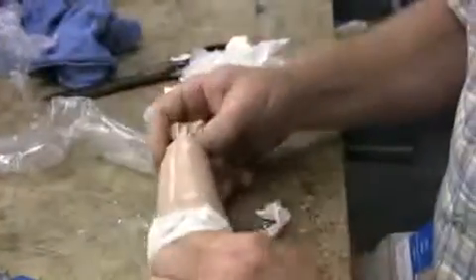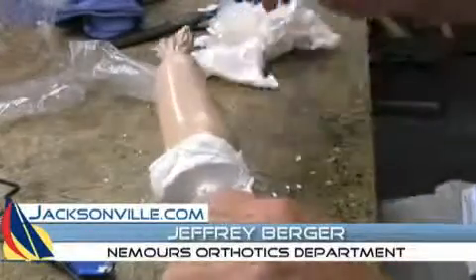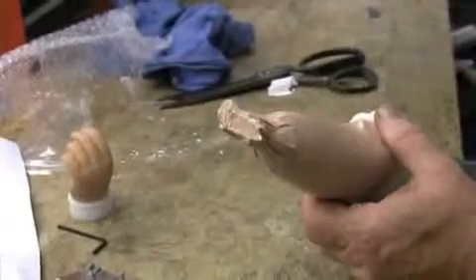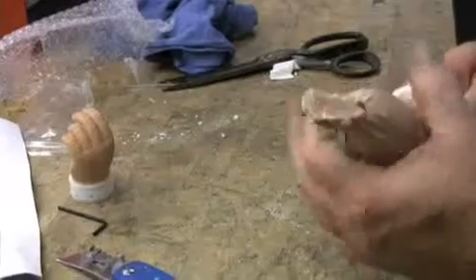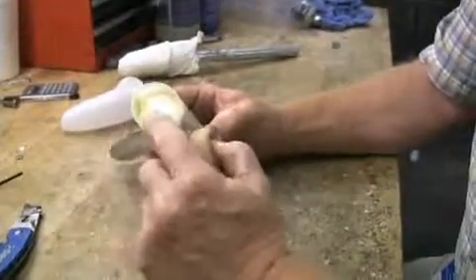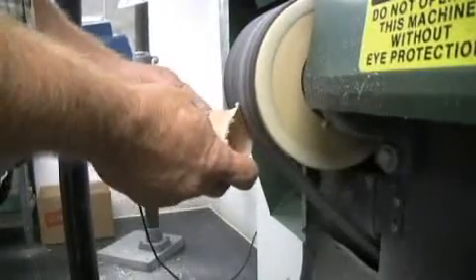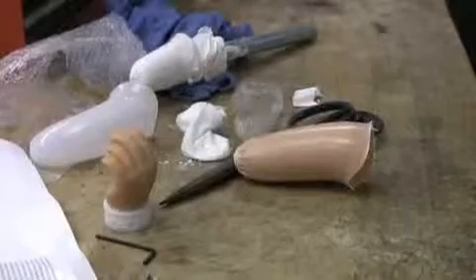What I was doing here was foaming up a prosthetic arm. It's below the elbow — it's going to be a passive hand. Basically, what we do is we make a hard outer socket to go over the soft inner socket, so it gives something rigid against the soft socket. Then we'll build the base out of two-part foam, grind it down, and this will give us an attachment base for the wrist unit for the hand. This is for an eight-month-old.